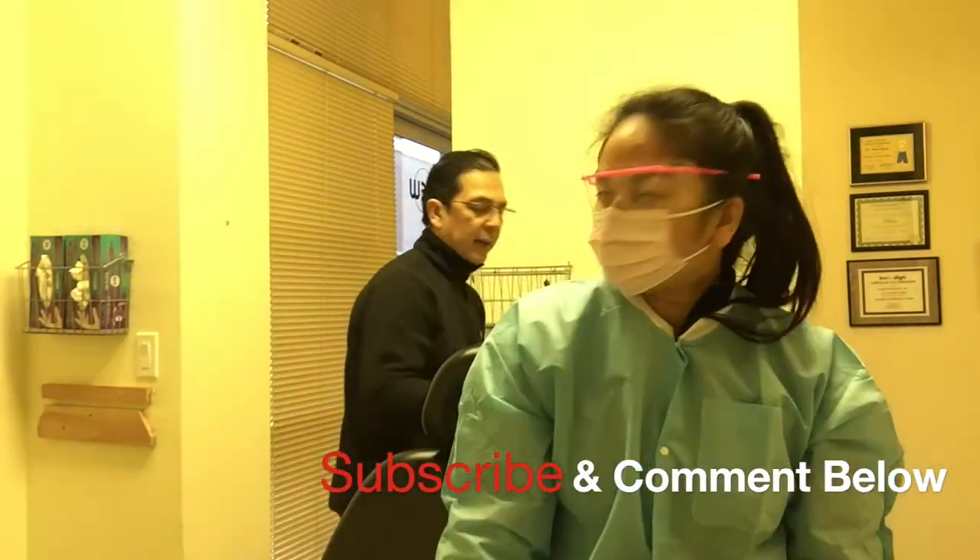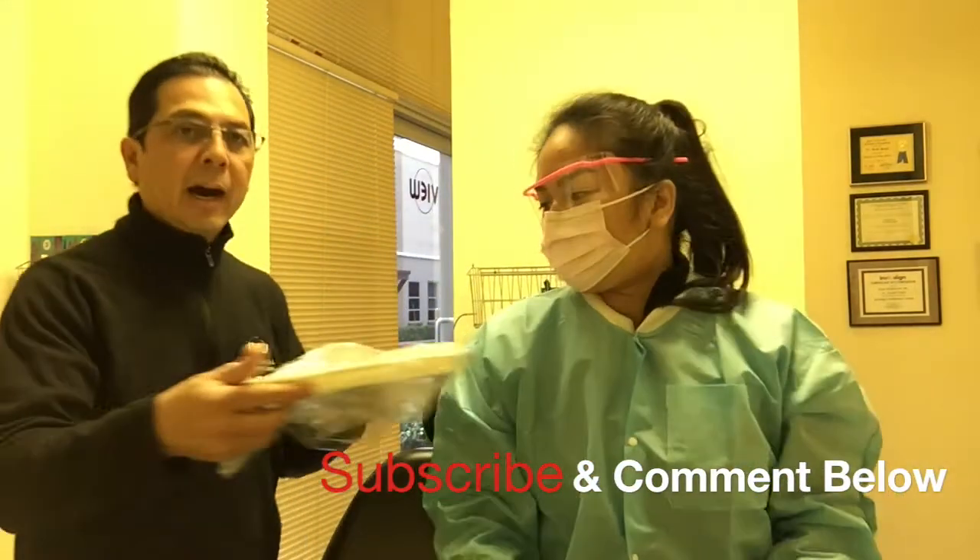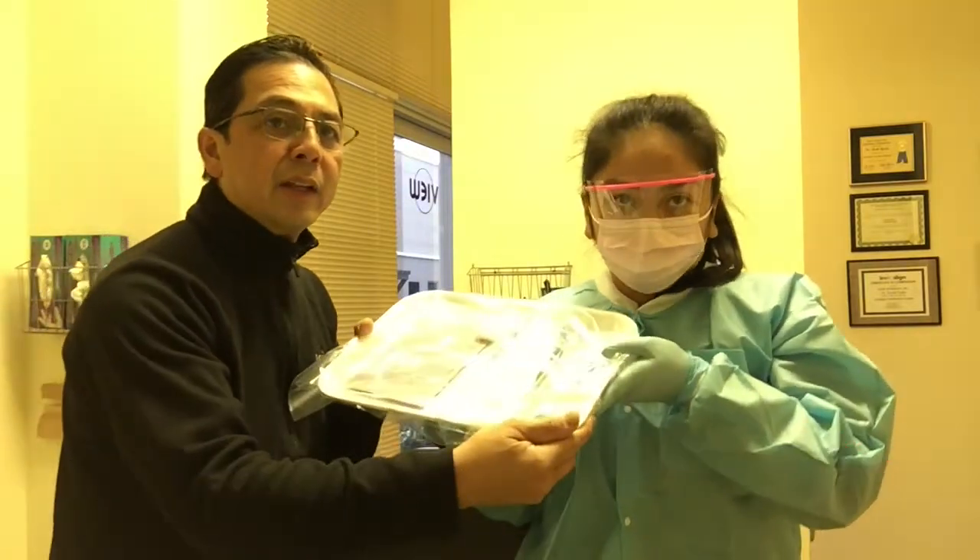One of the things we have to make sure is that our instruments are cleaned, they are disinfected, they are sterilized. So once we have all of our protective equipment, then we're ready to go ahead and unpack our dental instruments.